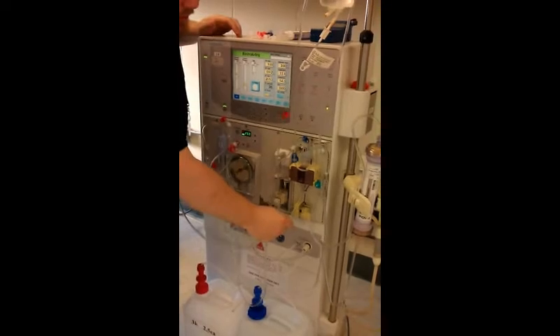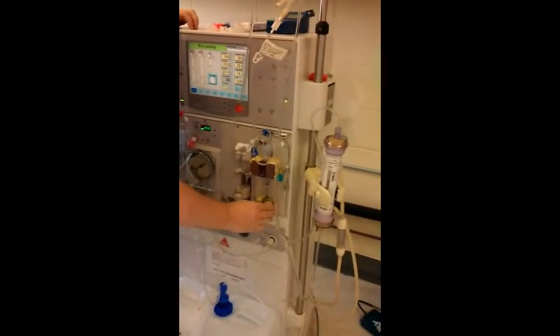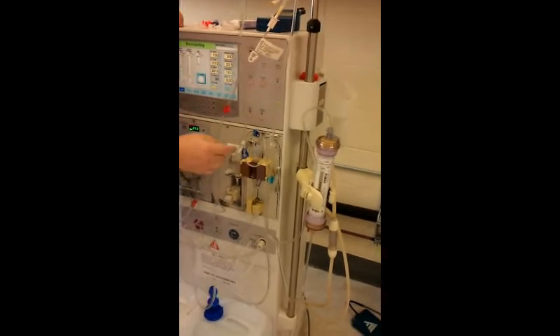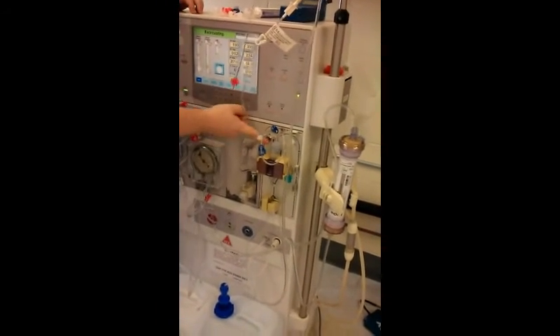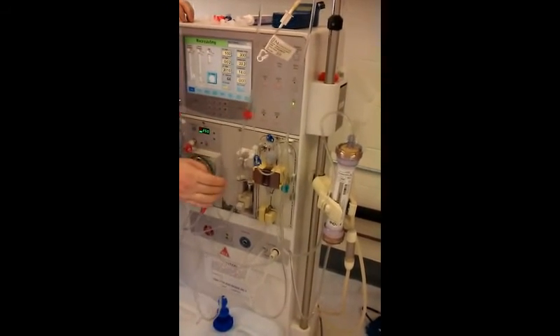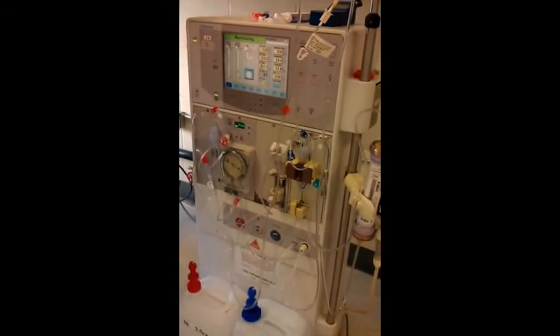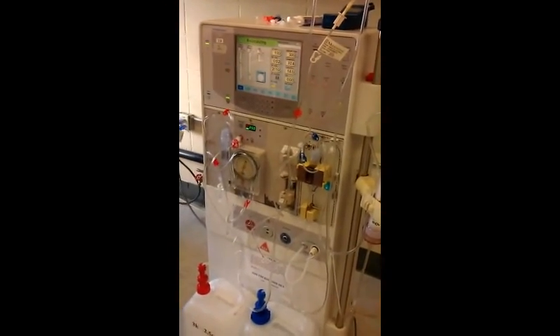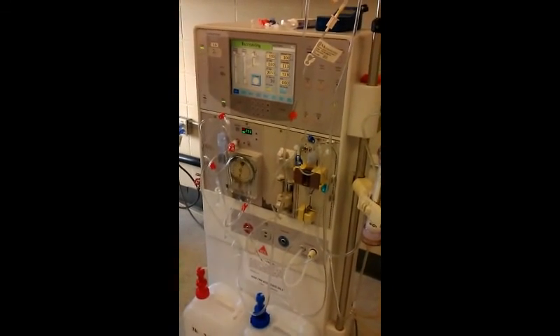The last thing I want to do is load this in the safety device. Just pull down on it and close the door — it's in the safety device. If I need to raise this level up, which is a little low, I can use the button to raise it up. So it's recirculating. When it's done recirculating, that would be the next step when we go to put the patients on. We're not going to worry about any more steps for now — I'll give it a minute.